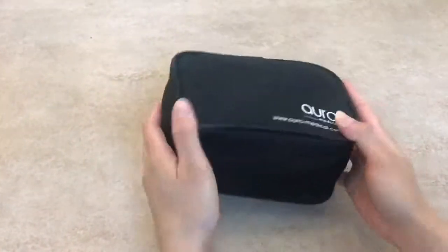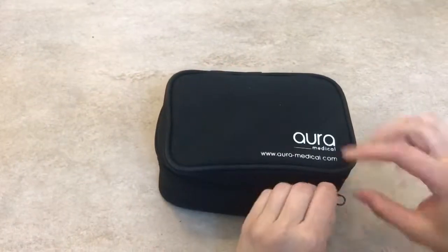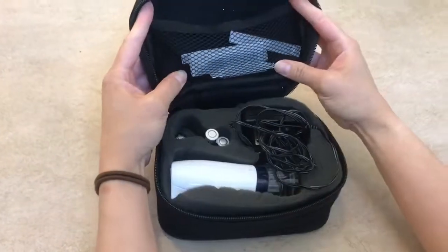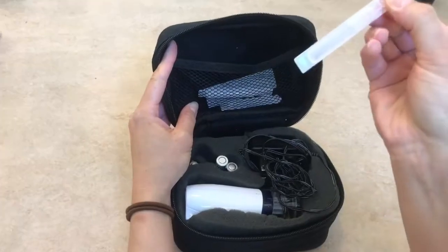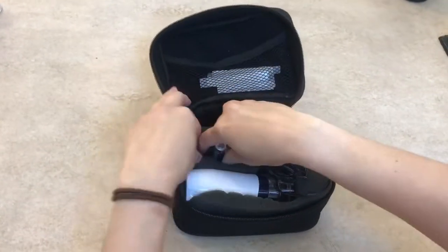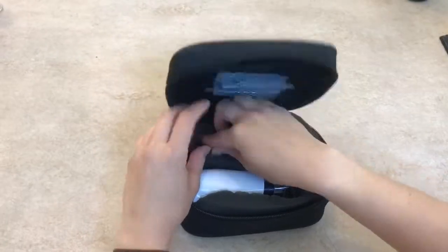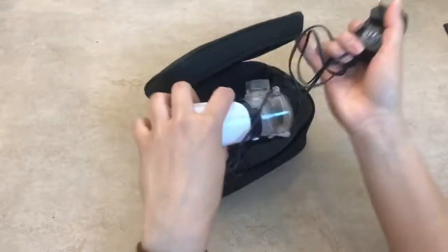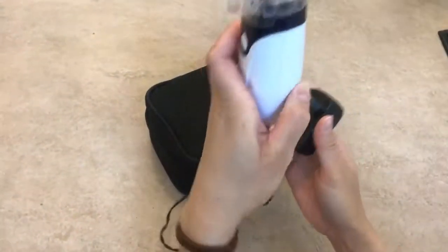This is an example of one of the brands that is very travel friendly. You can see here that it has a pouch where you can put your nebulizer treatments, and then here's the cord and also the batteries — the cord in case you run out of batteries.